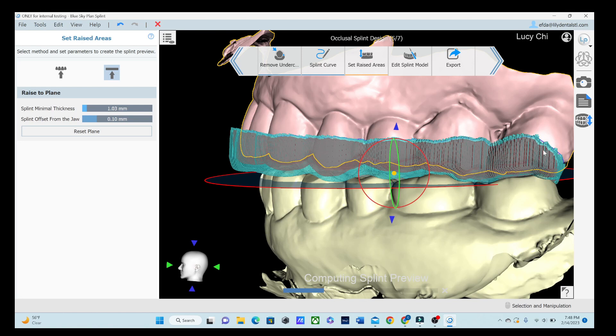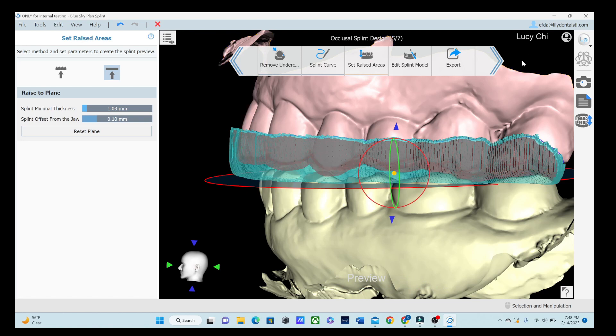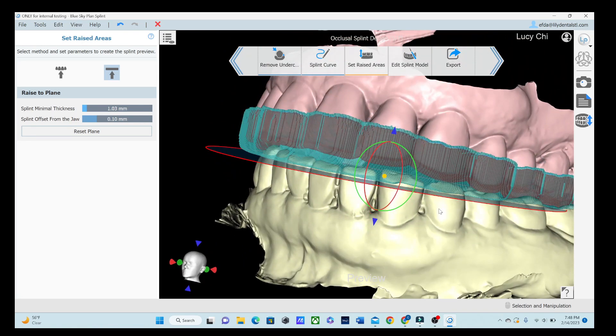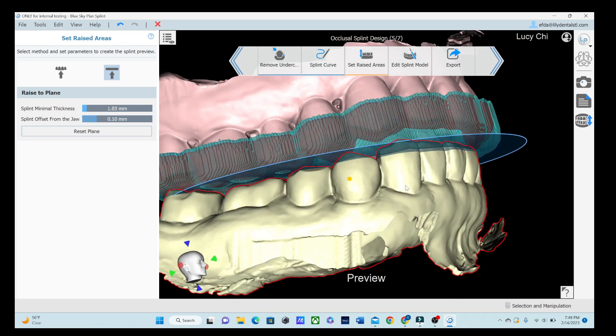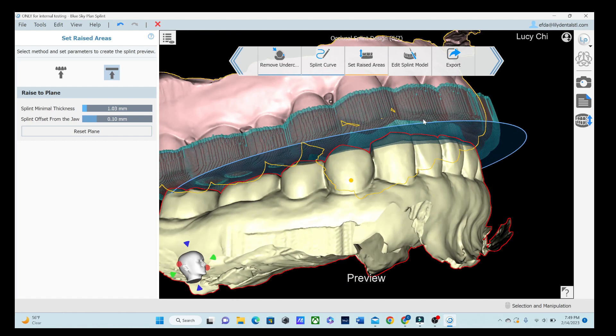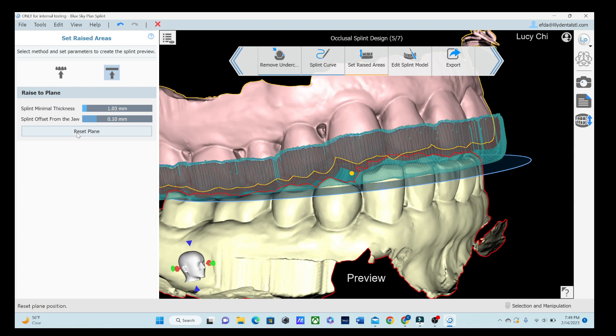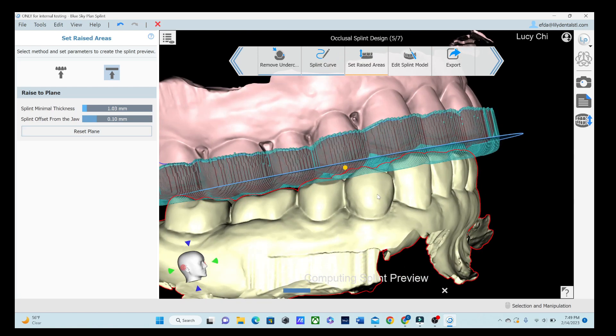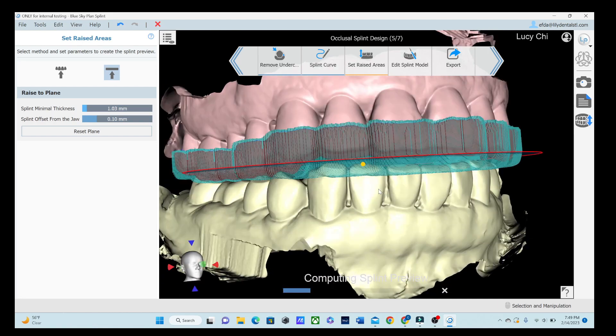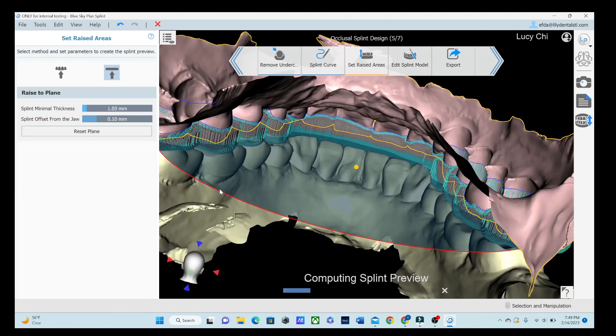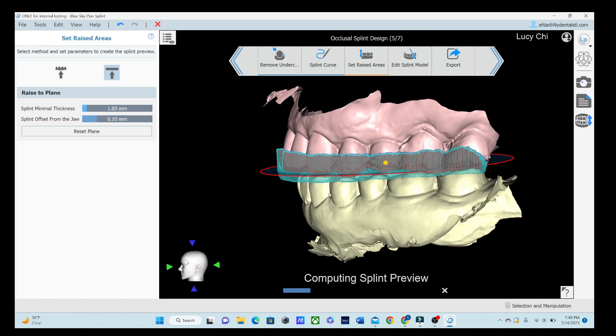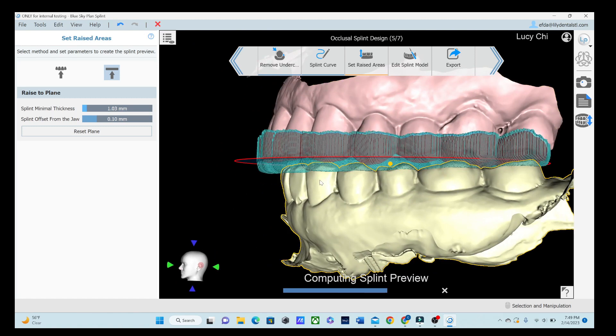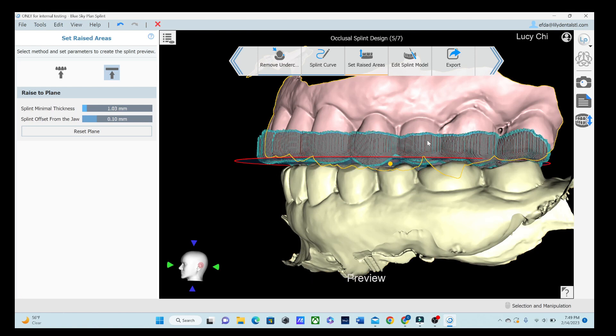You know, when I first did this, the first time it took me probably about 15 minutes. I would only imagine that it's going to go a lot faster. And they're continually removing all the bugs and fixing things and listening to our input. So that's kind of nice. So I have decided I like that one. That one looks good to me. Looking at it now, maybe a little, a little. So we're going to reset it. And we can change it if we want. That's the wonderful thing about digital dentistry. If we don't like it, we can change it. It's easily on the computer. It makes it easier to try new things and new techniques.